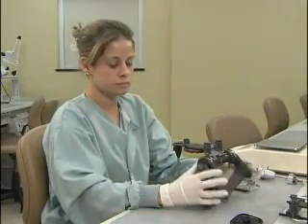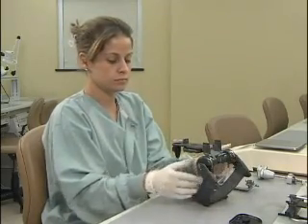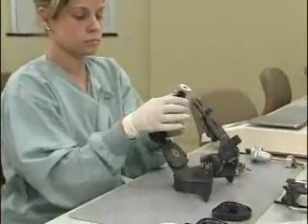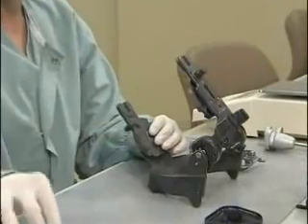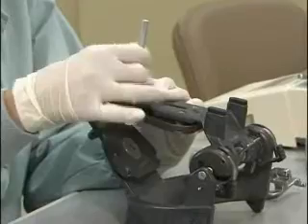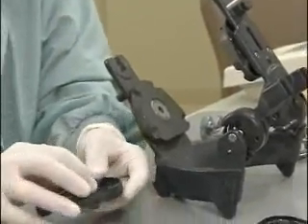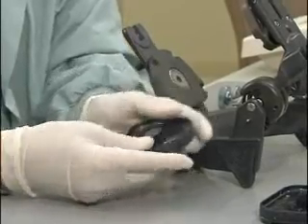Start by verifying that the condyles have been locked in centric relation on your articulator. Remove the incisal guide table and the incisal pin. Next, screw the post into the upper member of the articulator. Attach a mounting plate with a retention clip on the upper and on the lower member of the articulator. The retention clip is a feature unique to Kavo.